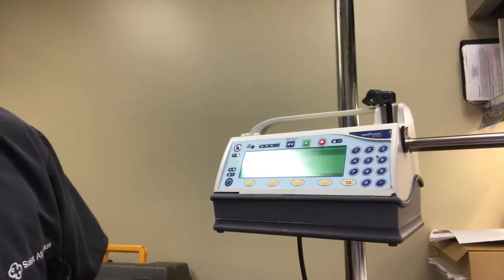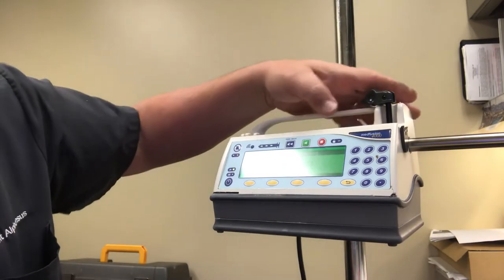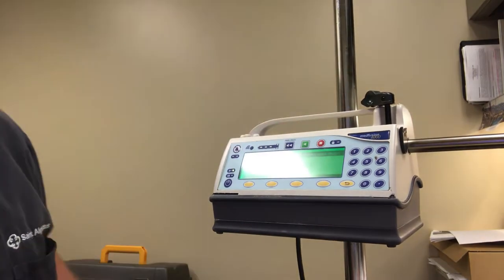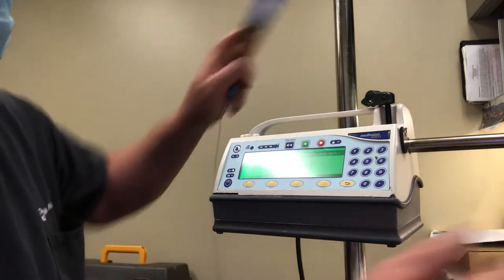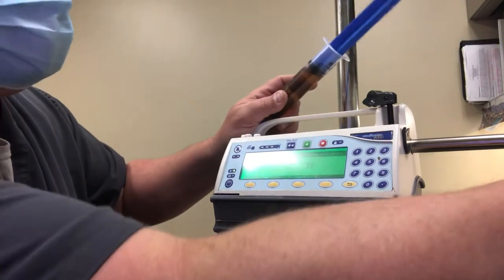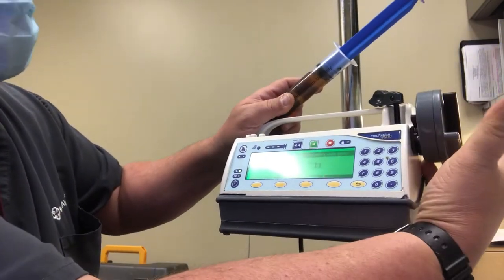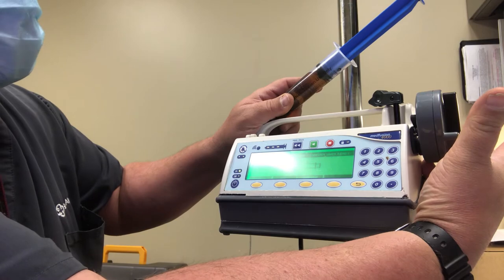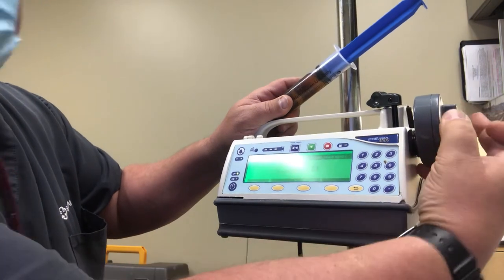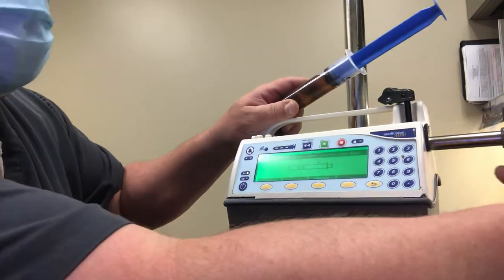And now it's looking for the syringe, we're going to silence that. So basically it will show like this when it comes out of the equipment room and you press this down in order to release this to extend it.